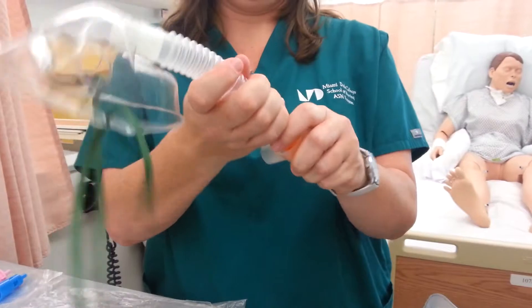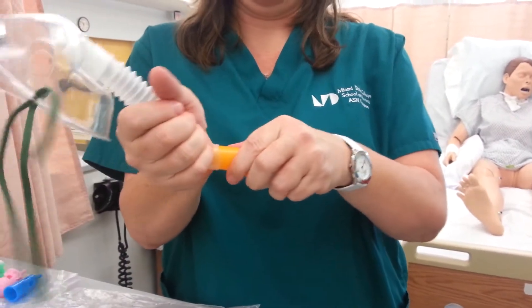The liters will be where you float the ball; the 50 will be the percentage on the paper. So we're going to do that. This goes into the end here, this goes into the other one.